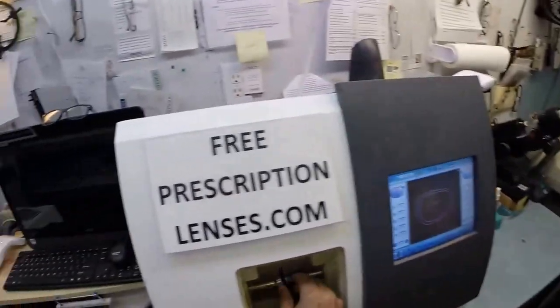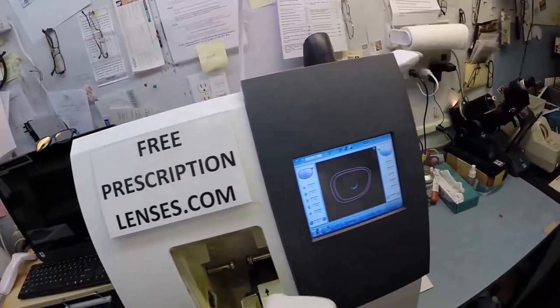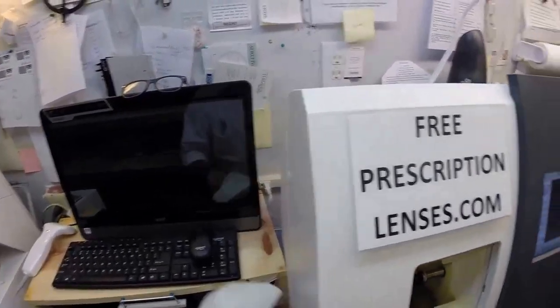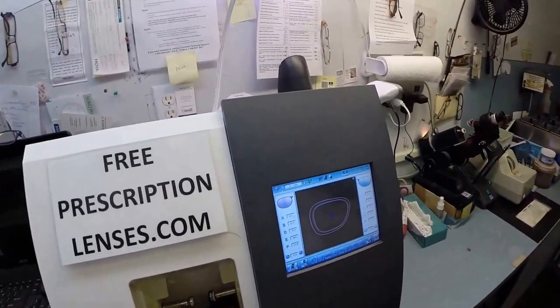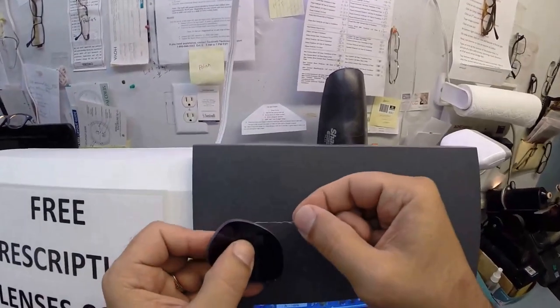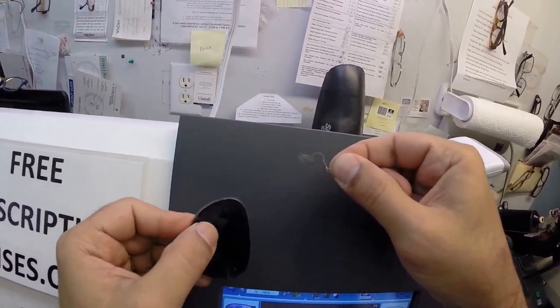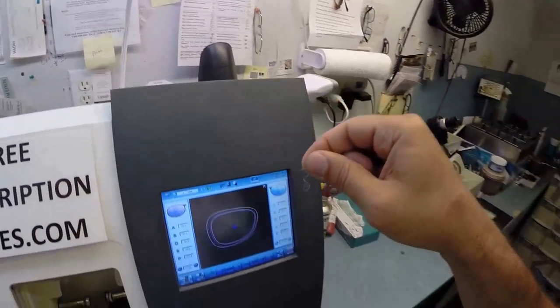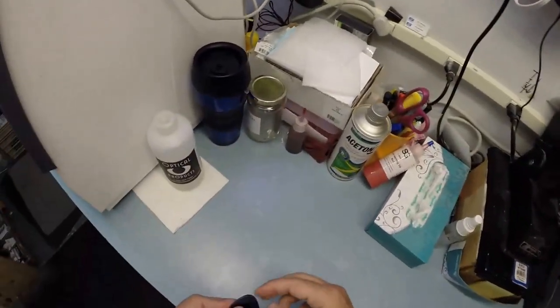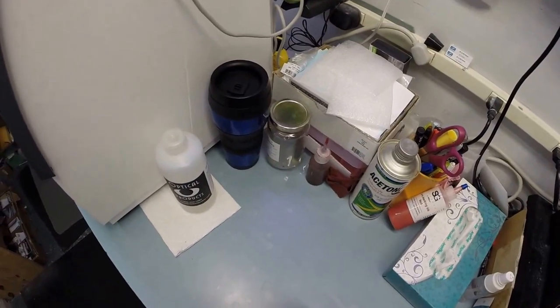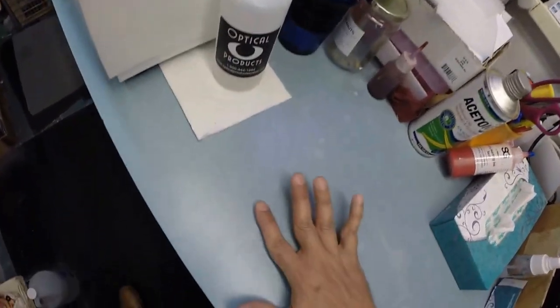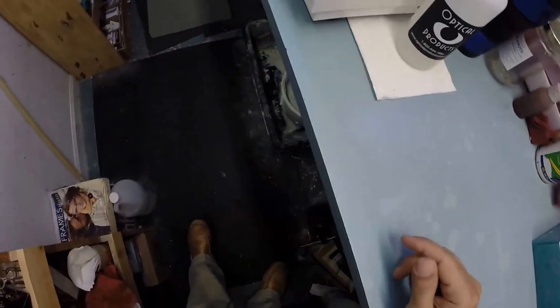Again, I opened the door with my mind. I had to open the button with my finger though. So I'm going to dry your lens off and let's see if it's ready to fit this time. Use my thumbnail to wipe away any of that optical debris. Look at that. That's like when you go to the dryer. Take the vent out and all the lint comes out in one place. I'm going to carefully collect that into one pile on the counter, and then when it's in one pile, I'm going to carefully and neatly wipe it on the floor.